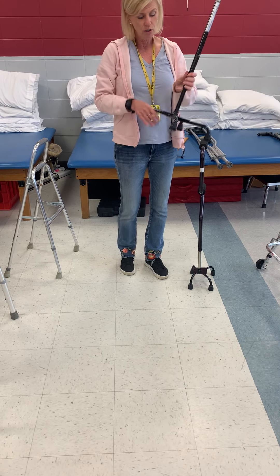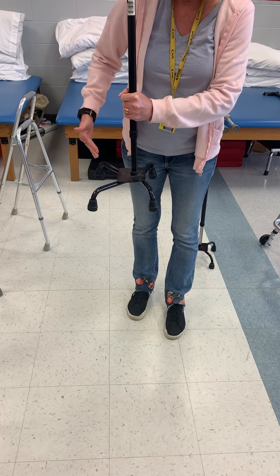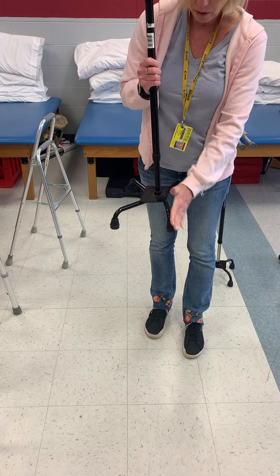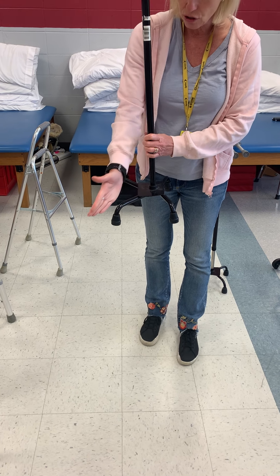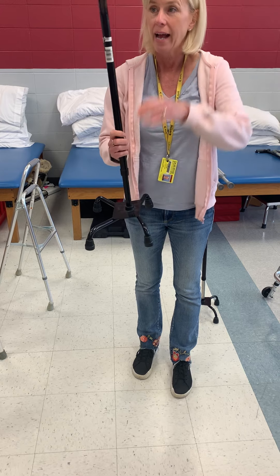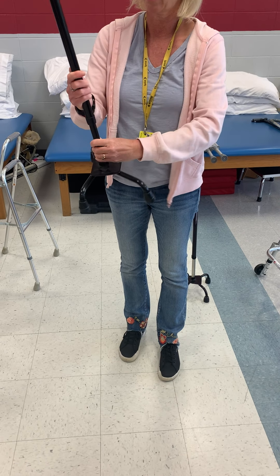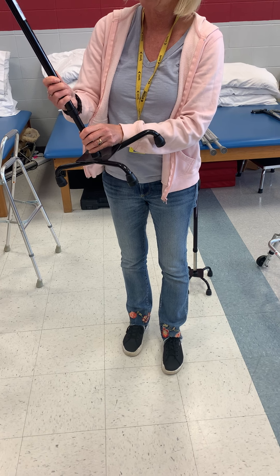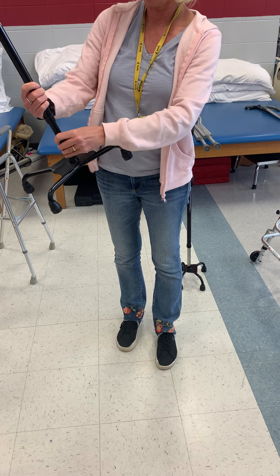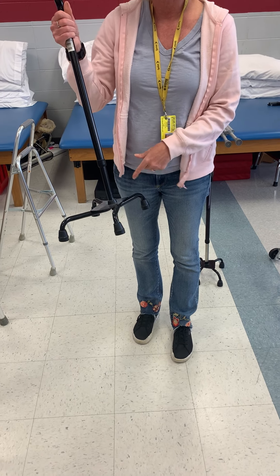On this quad cane, you can see they extend out at about a 45-degree angle, and this one is straighter. You want the one that's out at the 45-degree angle to be on the outside. If it's not, all you do is push in that button and it will turn around and lock — you can change it from side to side.